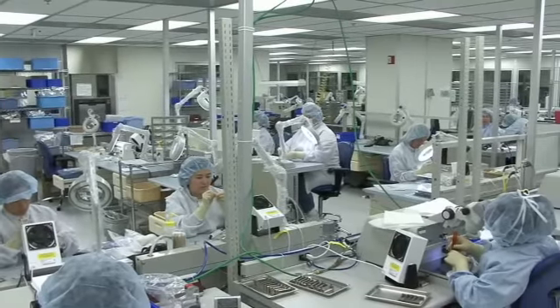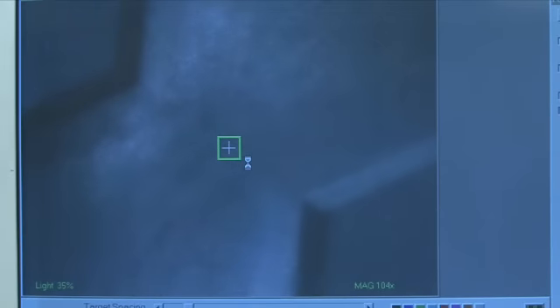In our final controlled area, the parts are again inspected 100% visually under a microscope and computer matched for the best dimensional tolerances and fit.